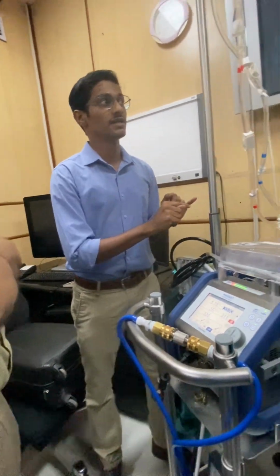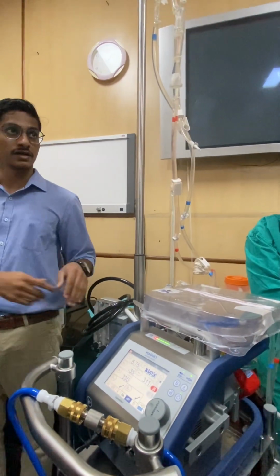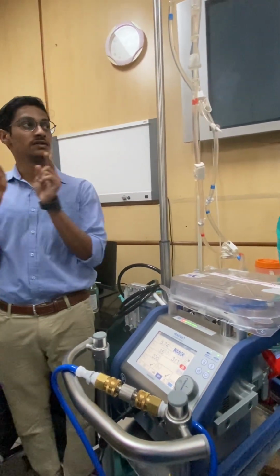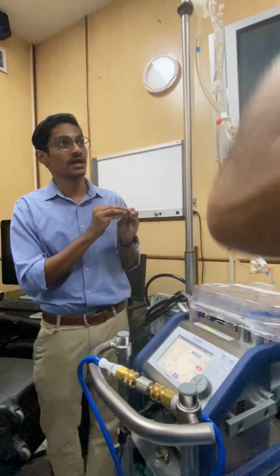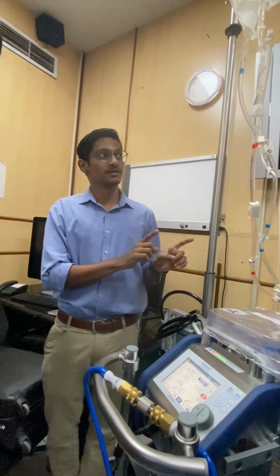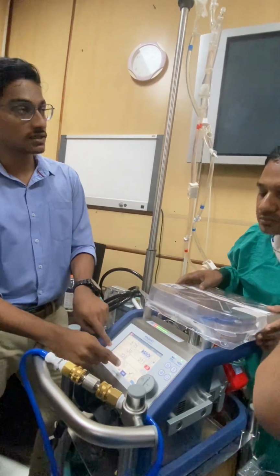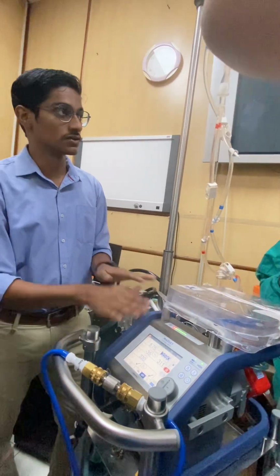But when it comes to arterial, even if we stop the pump, the patient will be here, the line will always be on the upper side. There is always a risk that even if we stop the pump, the next site is the patient. So in such scenarios, we directly stop the pump. Even if there is air, due to the backflow, the air will not go into the patient. But there is always a danger of backflow and collapse. So for arterial, the intervention is pump stop. For venous, the intervention is zero flow mode.